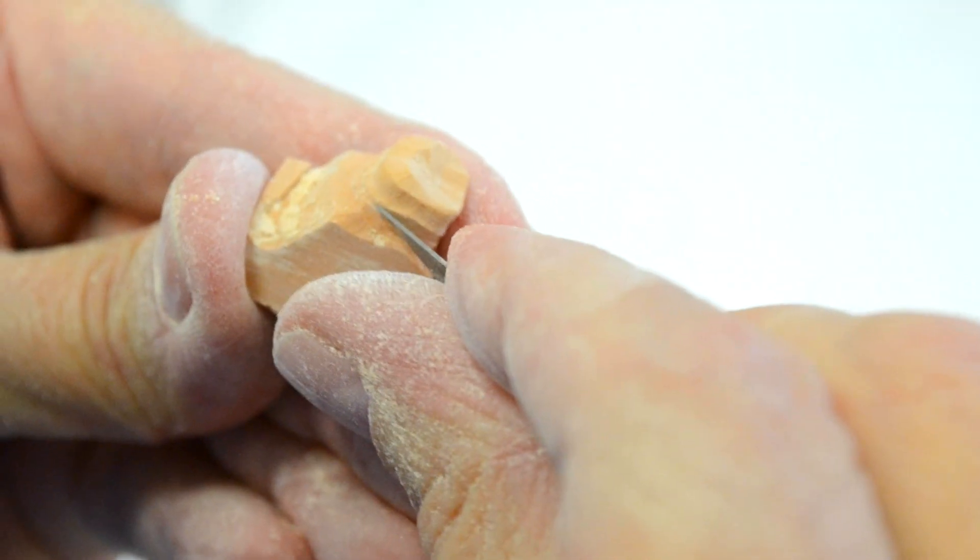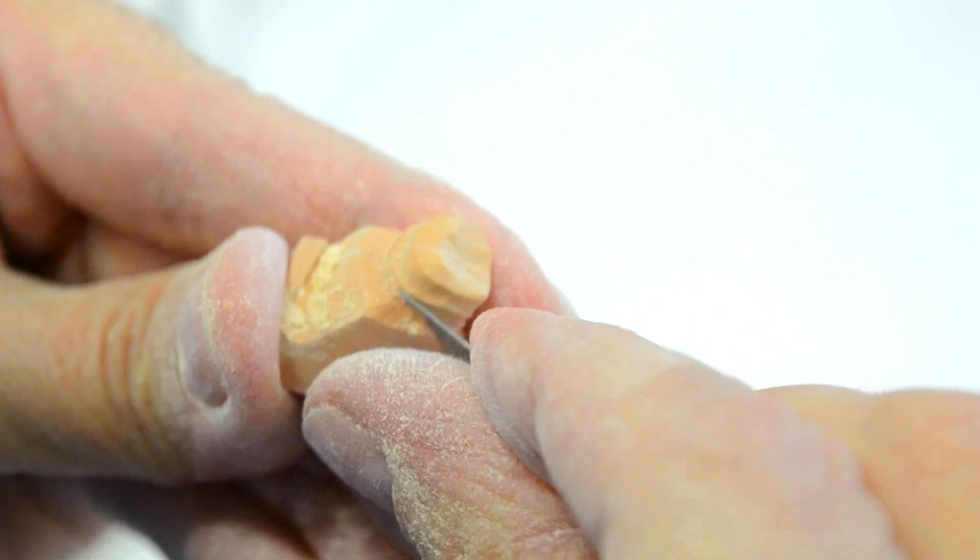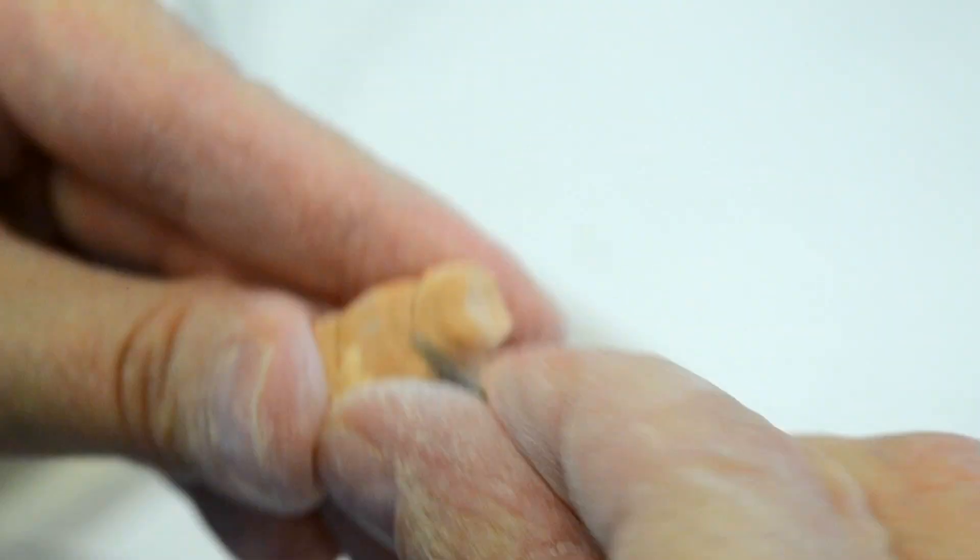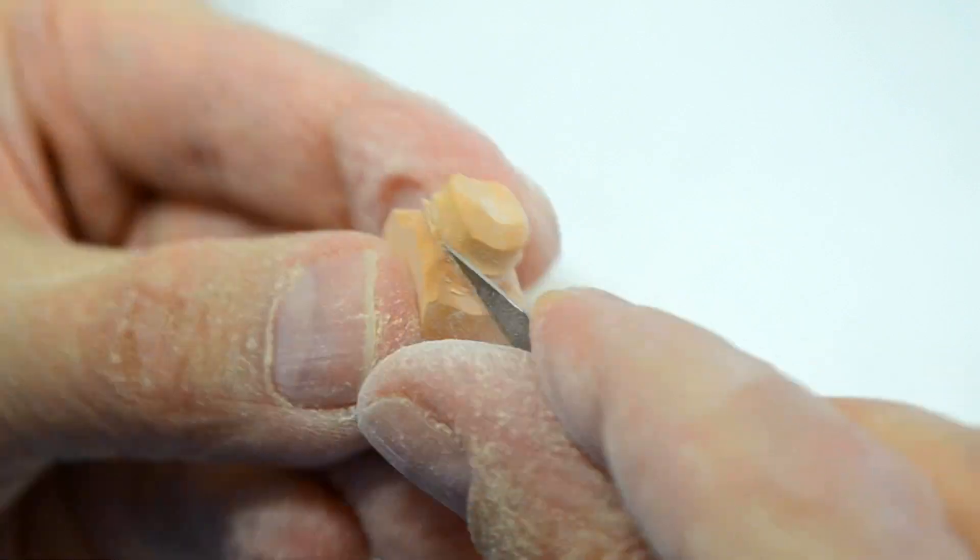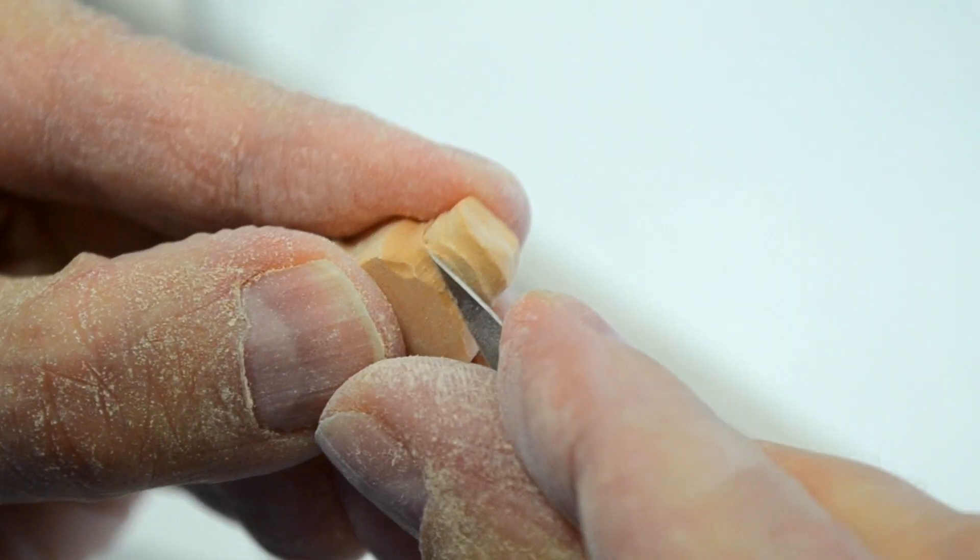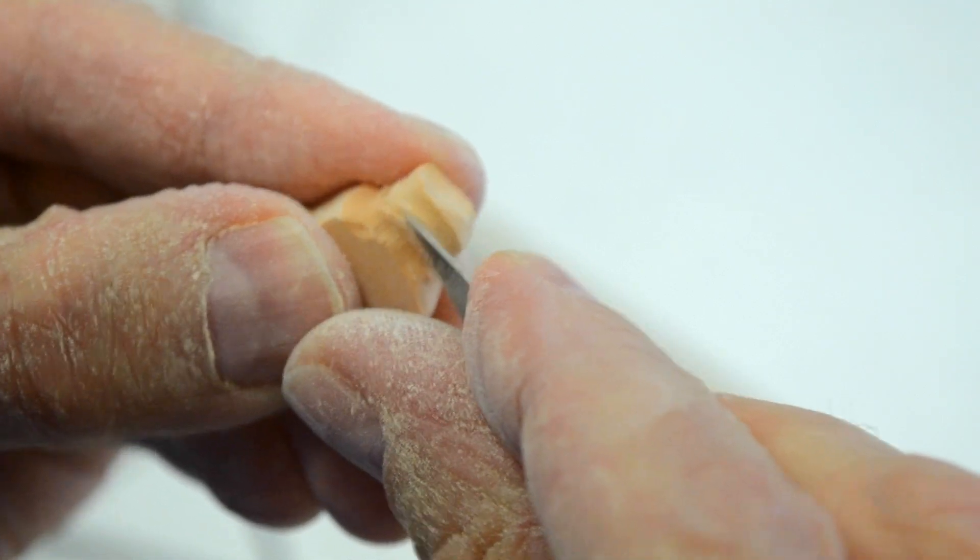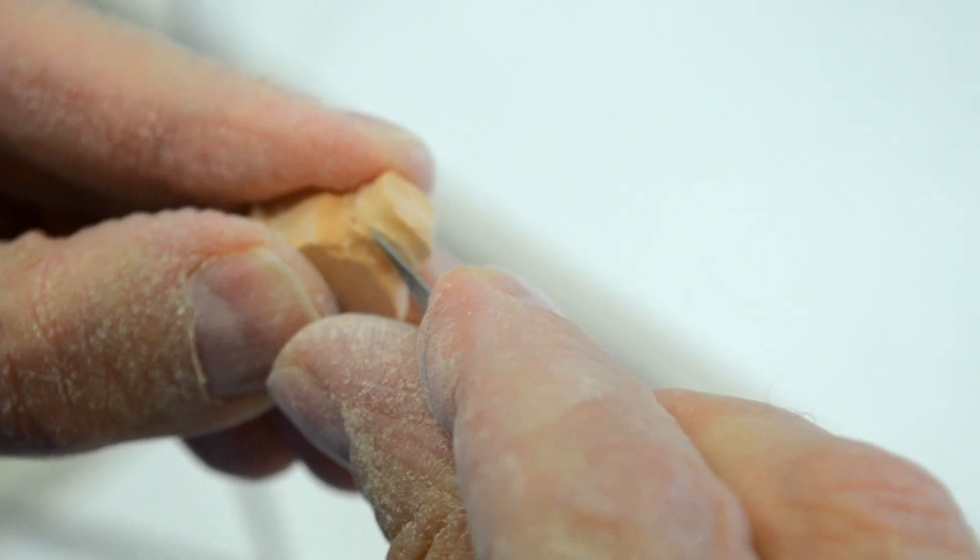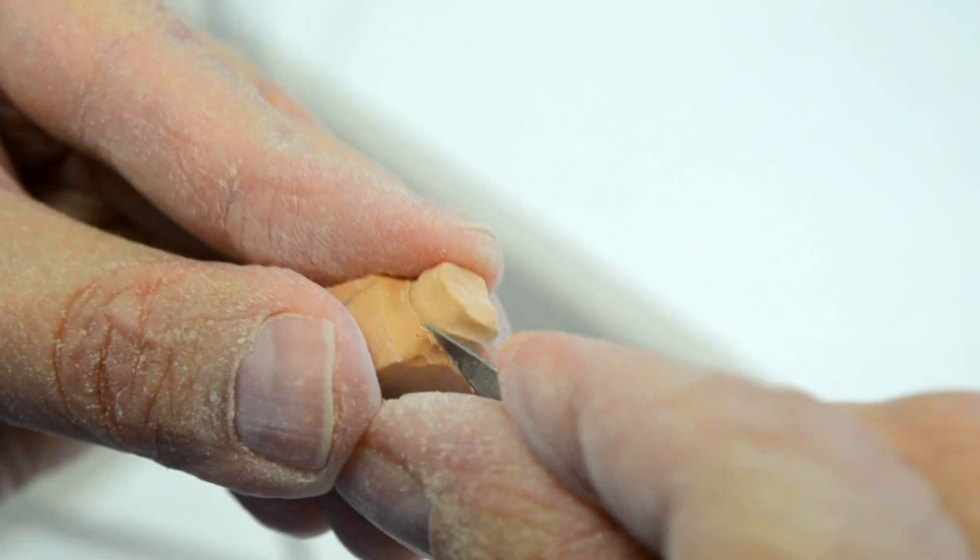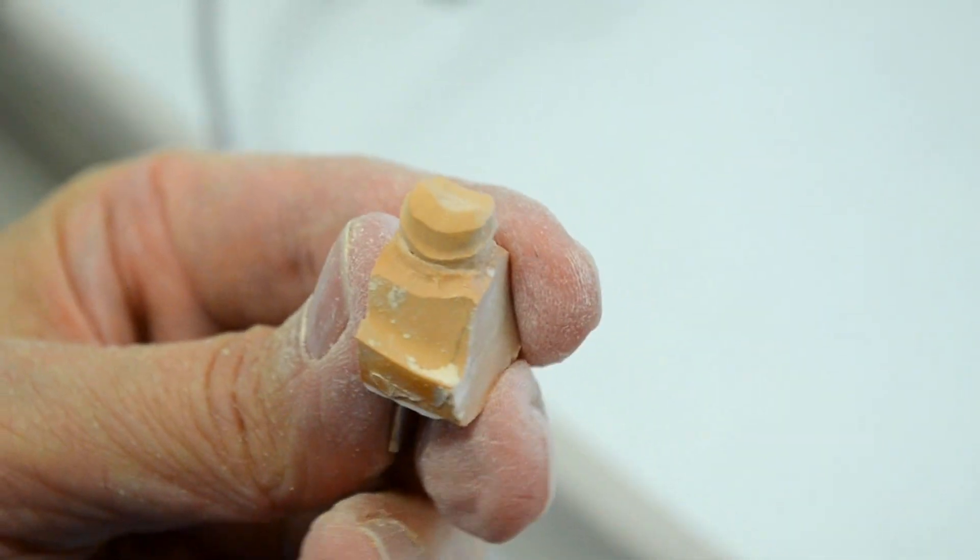So once again, I'm cutting in an apical direction. Just about finished. And now you'll notice how much more accessible the free gingival margin is.